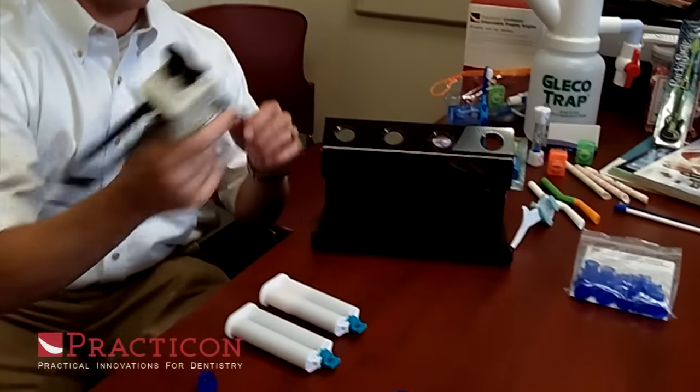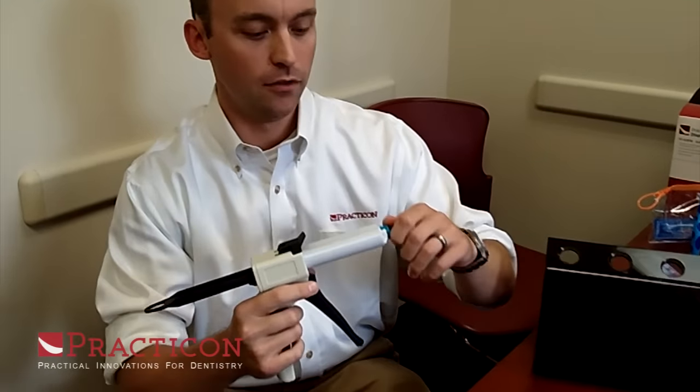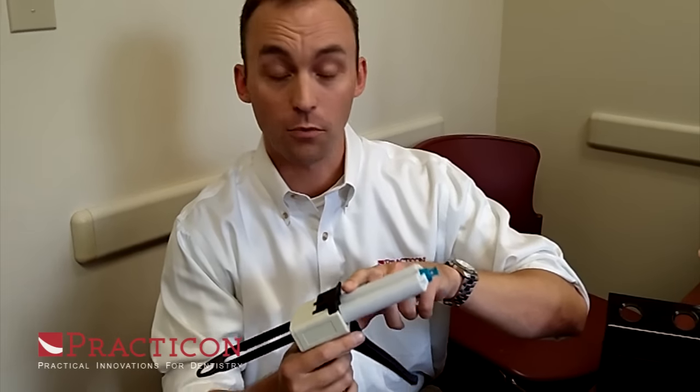It's an easy way to take material from a donor cartridge like this one and lock it in place in a standard VPS impression gun. By the way, it does take regular round flange high-performance cartridges.